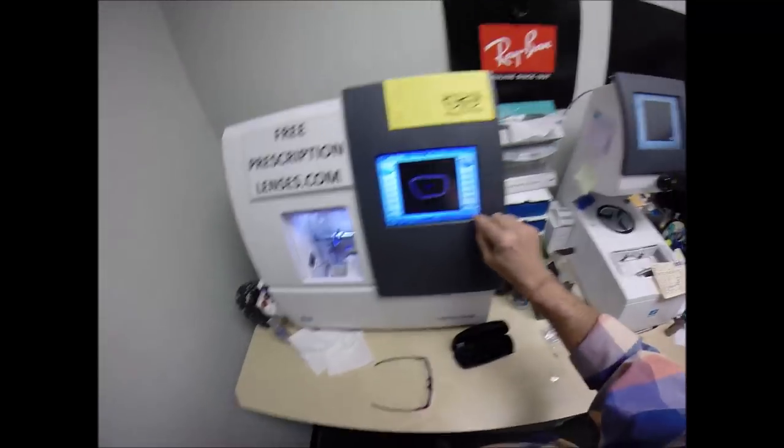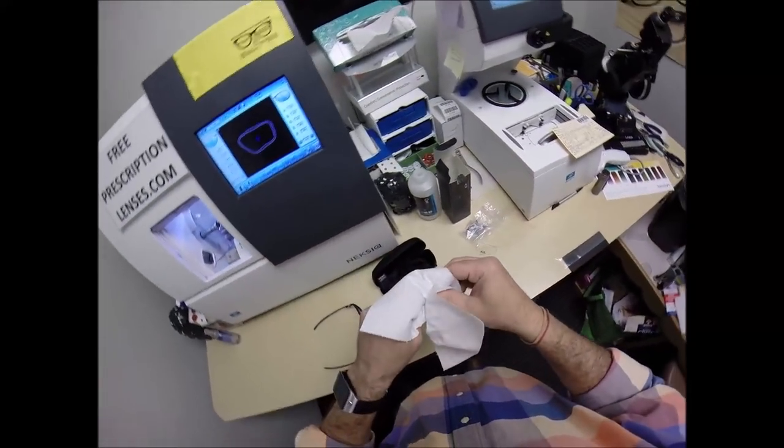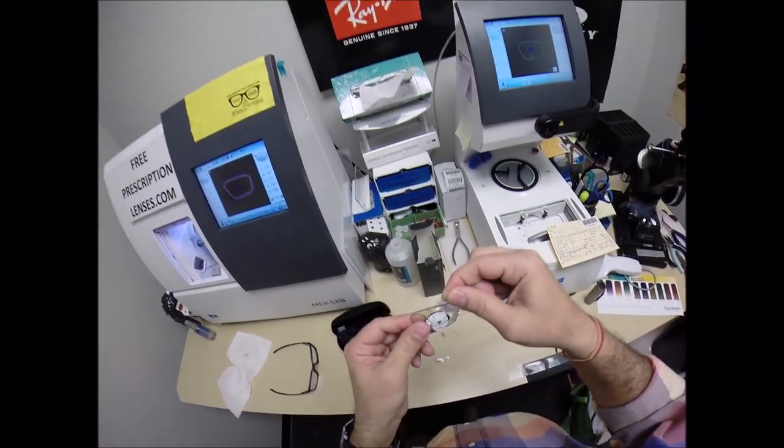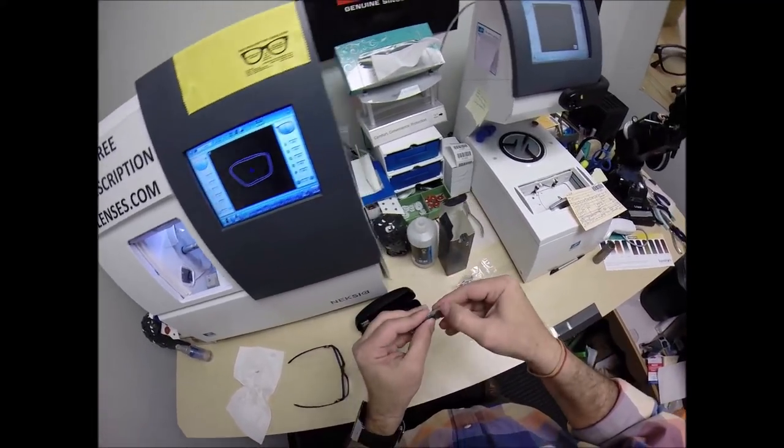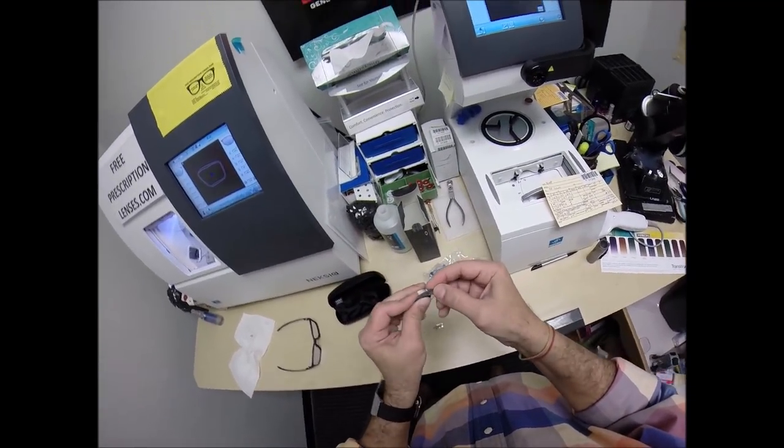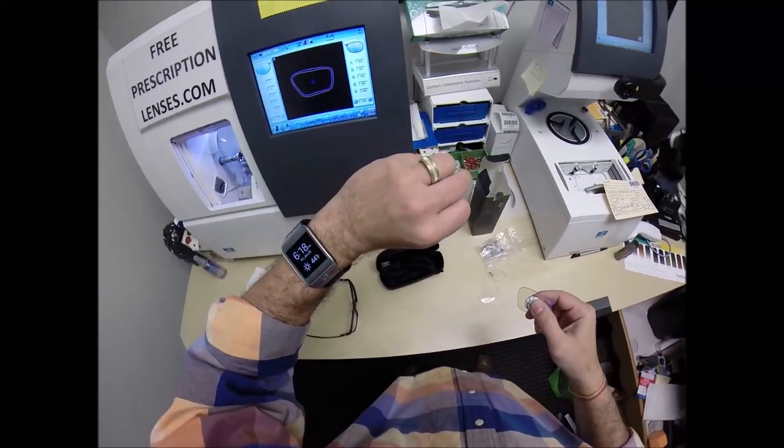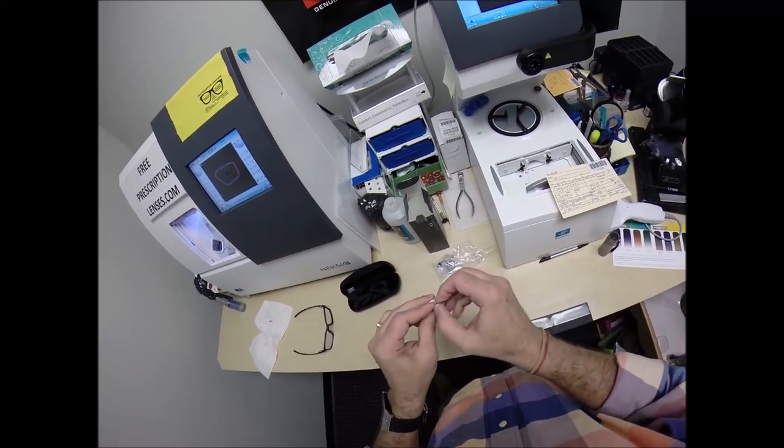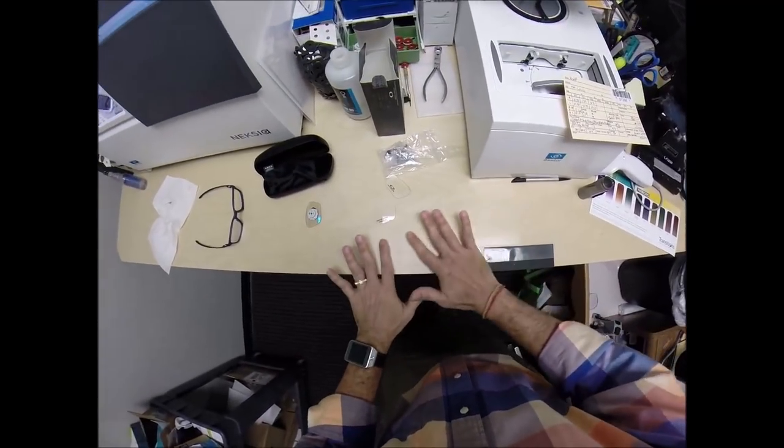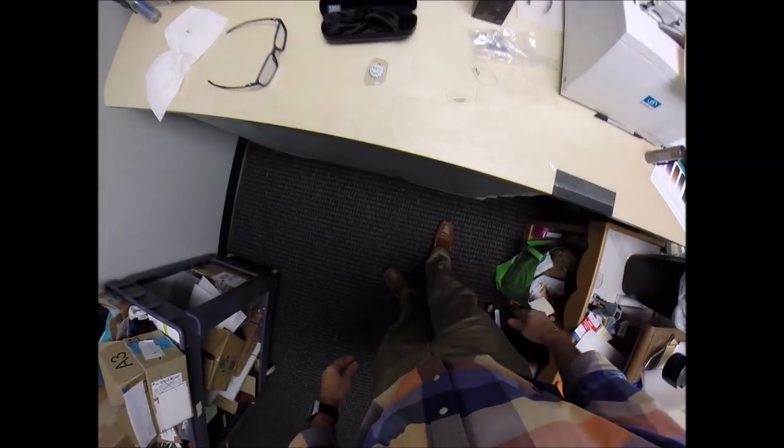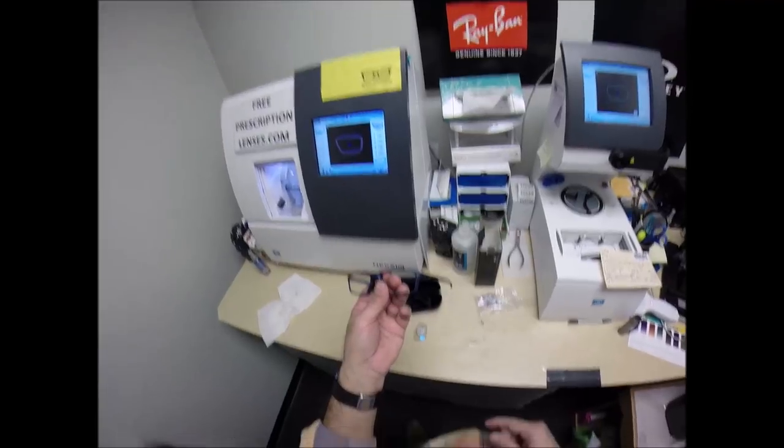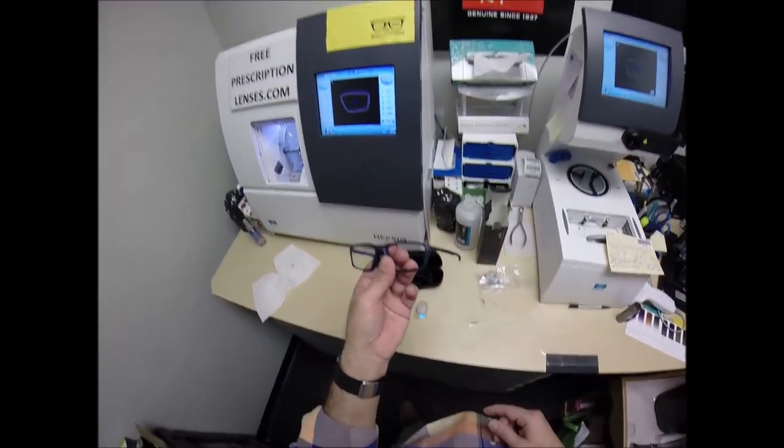I'm going to run my thumbnail around. I love it when it comes off in one big piece, like when you clean the lint trap in the dryer. Once I have all the optical sawdust off, I collect it neatly into one pile, and then I wipe it on the floor. Kids, I went to school for years to learn how to make a mess like this. If you want to grow up and make a mess on the job, you gotta stay in school.